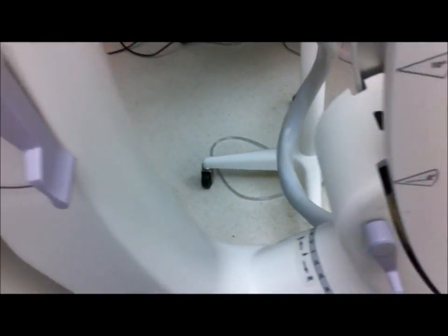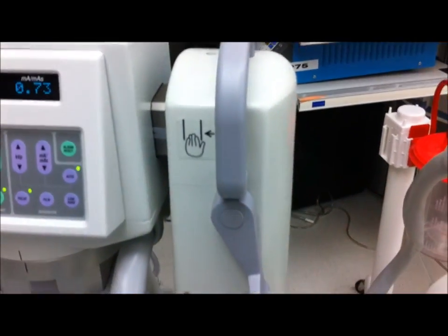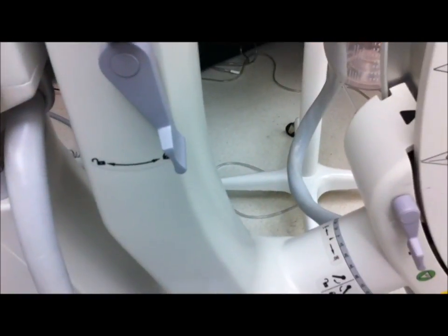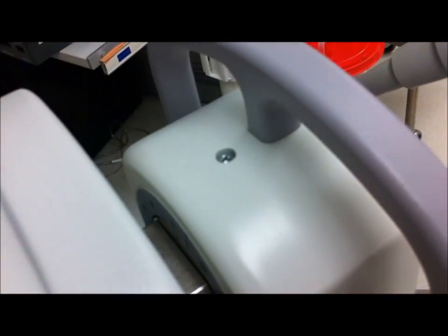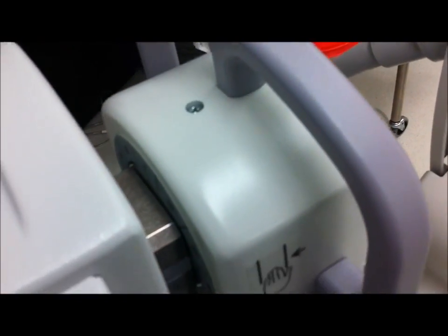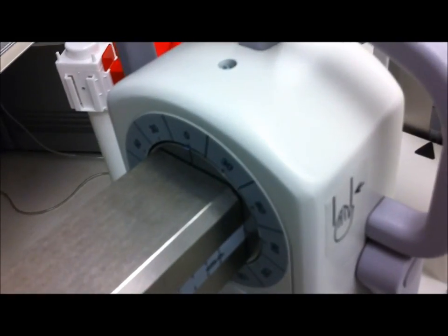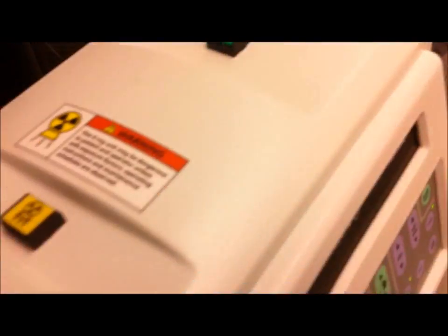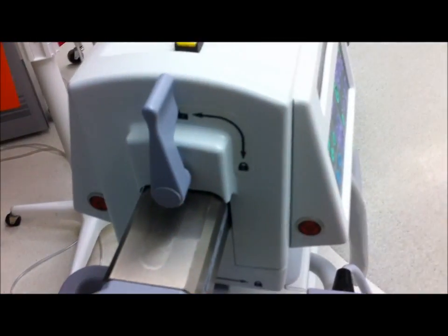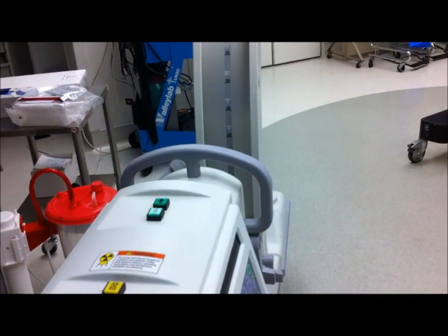Because this is an MTS model, it is built to have extra functions here. This one allows you to tilt — let me pull it out, actually. So this allows you to turn the machine to whatever angle you need. And what I just used here is a push-in, push-out function.